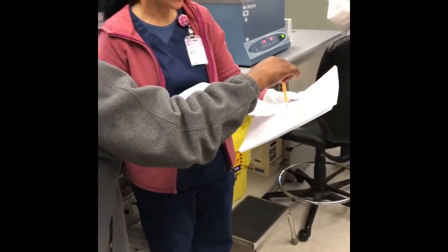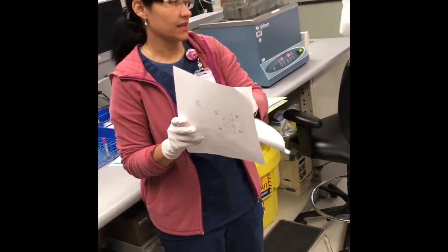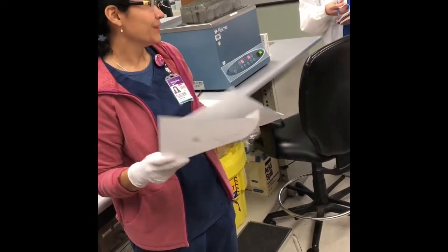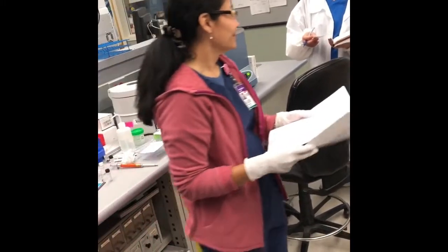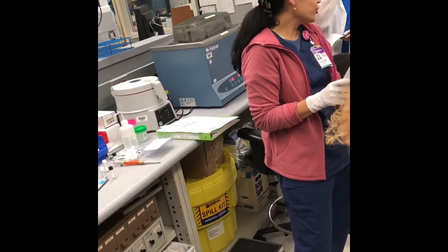It's just the total number of squares from A to B. This is the calculation, where it's supposed to be the entire chamber, so it will be 1, 2, 3, 4, 5, 6, 7, 8, 9. And then you count them all. Like I said, you count both sides, add it together, multiply it by the dilution, and then divide by the number of squares. So the dilution is just 1.